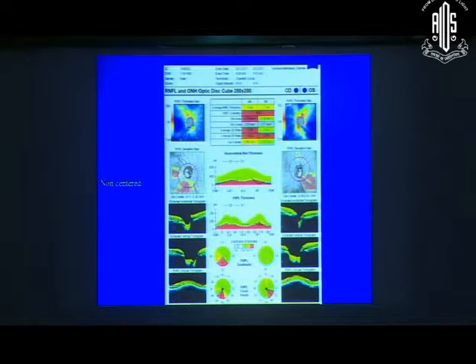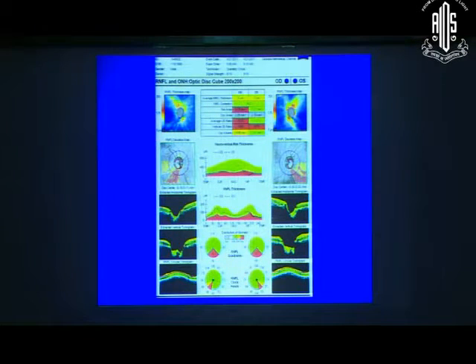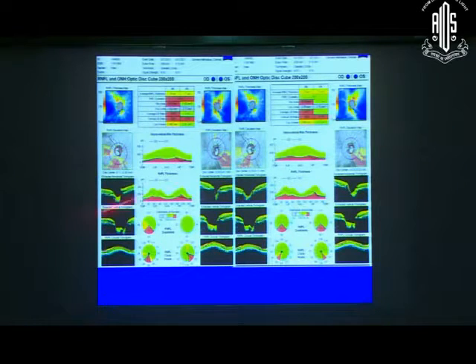I will walk you through one more. This is with the Cirrus OCT and here you have this scan obviously not well centered. This is de-centered downwards. That is de-centered upwards. This is when you do it after centration. And now you can compare both face to face. And what you are seeing over here is this abnormal zone has become normal. This abnormal zone, this normal zone over here has become abnormal. And it has changed the way you would classify disease. And this is important for you when you are doing longitudinal follow-up. Also when you are looking for hints of damage. So if you do not look at the centration, you can actually misinterpret the OCT image.